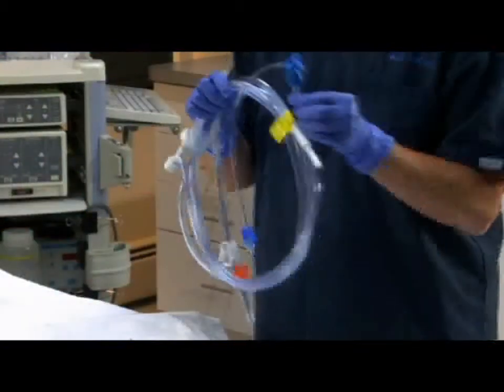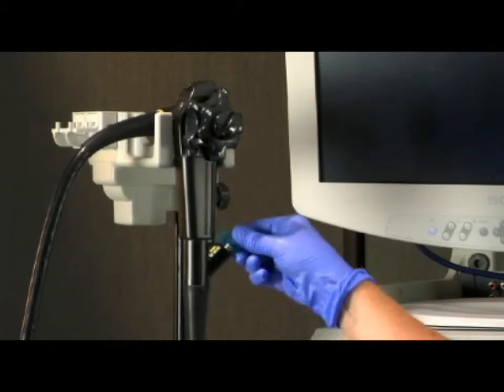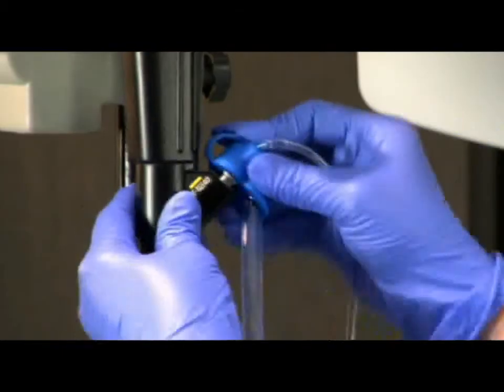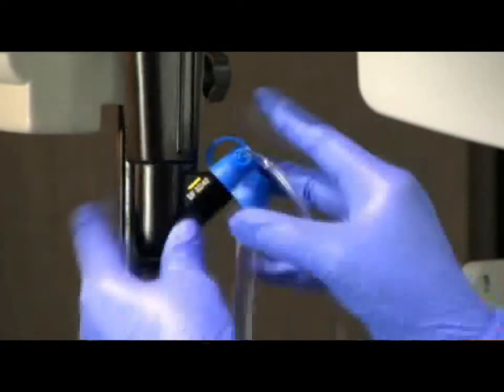To set up the BioVac device with a Y-Port connection, remove the existing biopsy valve and attach the BioVac device's biopsy valve to the biopsy inlet.